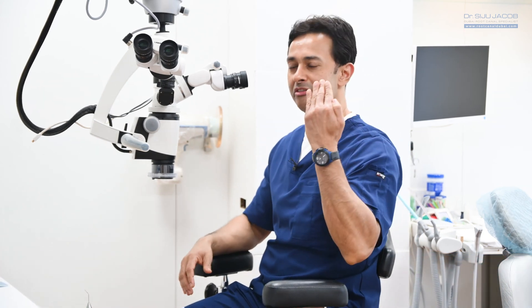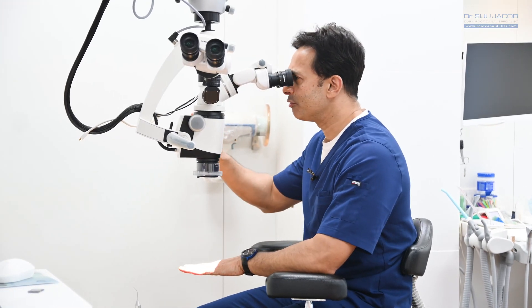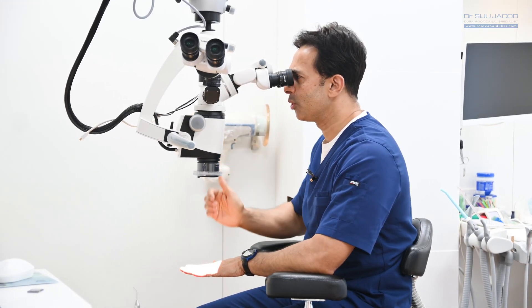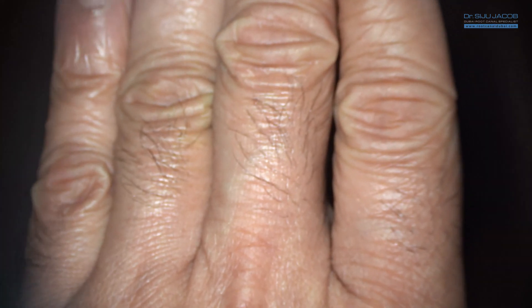I'm going to look at four of my fingers under the microscope, and when I start viewing them with the lowest possible magnification I can see all four of my fingers. But as I increase the magnification, you can see that I'm able to zoom in to a single hair follicle, and it is possible for me to do surgery on this single hair follicle.